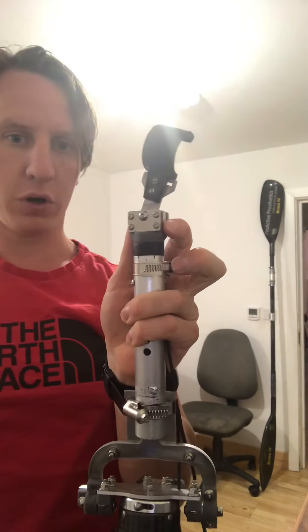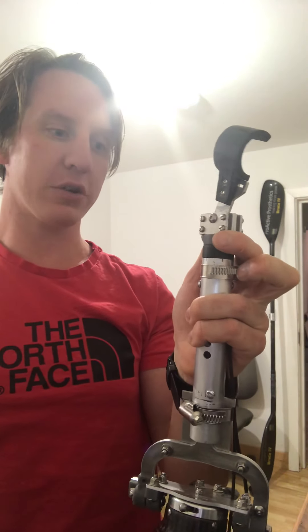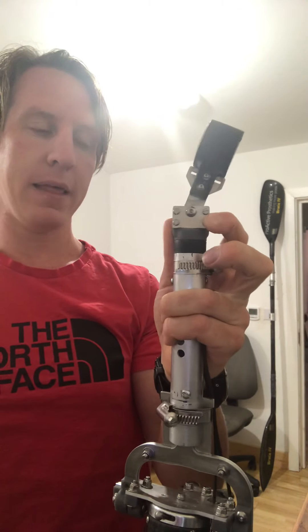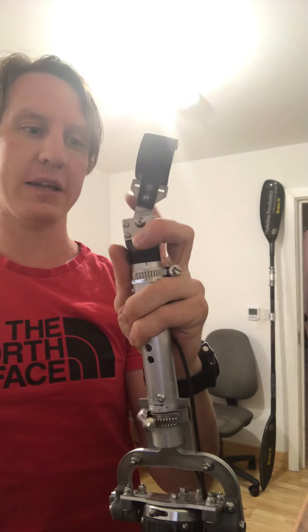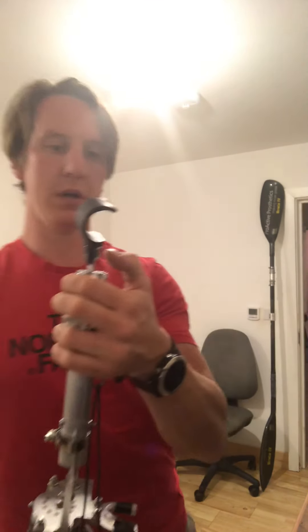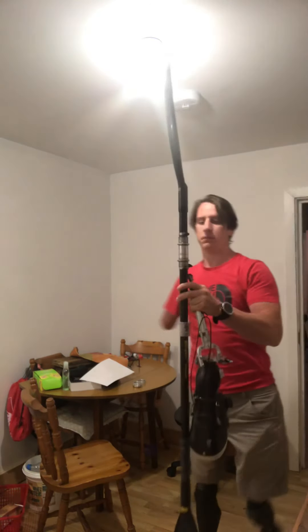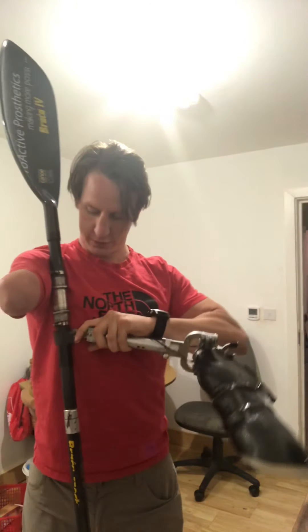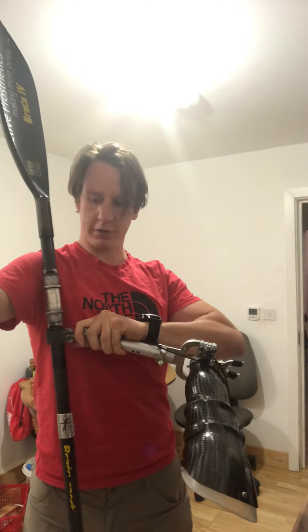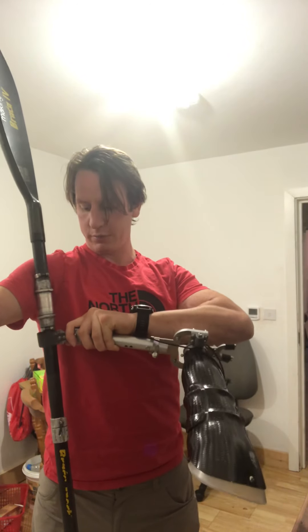What I do love about this design is the wrist unit and hand — it's really cool. There's a rotation built in, and then wrist flexion as well, which Oli has designed in. I think having a solid arc is great. We didn't quite decide on the final grip with Oli, but I like the idea of something solid that has a nice tight grip yet is loose enough that it will swivel — a bit like the aluminium grip does — and we just need a quick release clamping system.